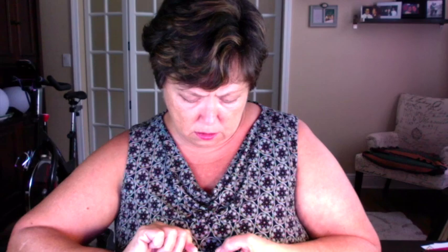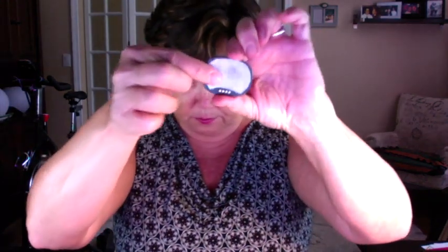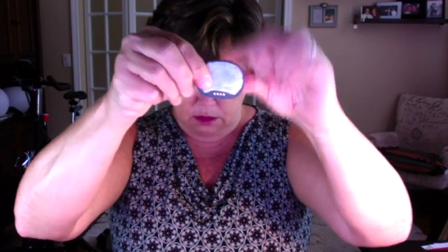So with that done, that little tab sticking out on the end will help you to get a grip. You're going to pull the top part off and place the sticker like this. And voila — you have this plastic piece that you're going to save. It actually sticks quite well to the mirror. If you're doing this in the bathroom, wherever, you just put this down and save it.